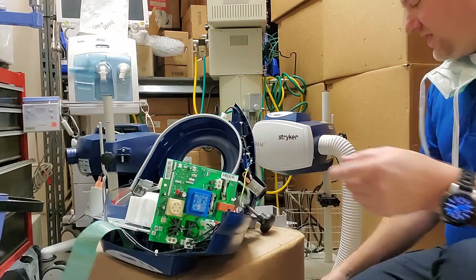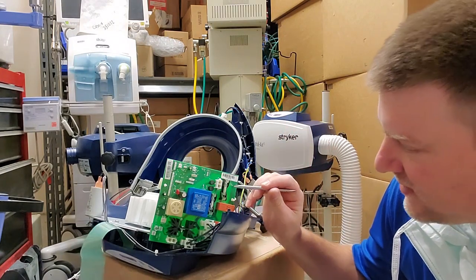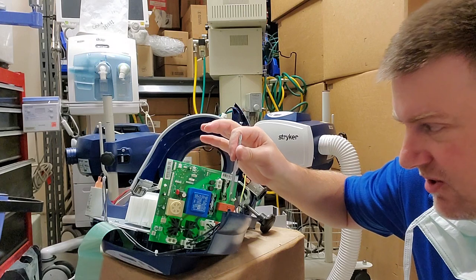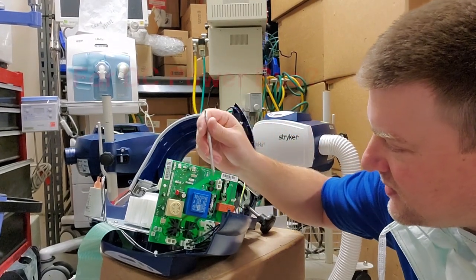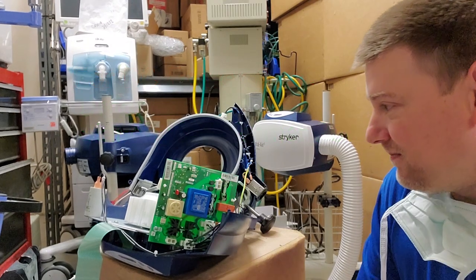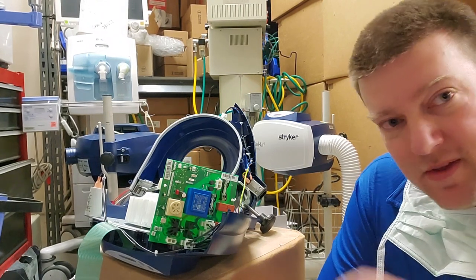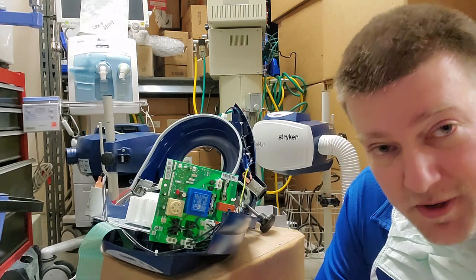There is a very interesting thing here I want you guys to take a look at. On the AC power board you can see it's got dual capability fuses — L1 and L2 are fused. It has a very special type of fuse holder that can hold either large cylindrical fuses or the smaller ones. It's also got secondary fuses — those two black cylinders are also fuses. This unit has backup systems in place because you're dealing with temperature and patients. You have to make sure that if there are any voltage spikes this unit will go out of service, because the last thing you want to do is run a unit at higher than nominal temperature — you'd cook your patient almost literally.